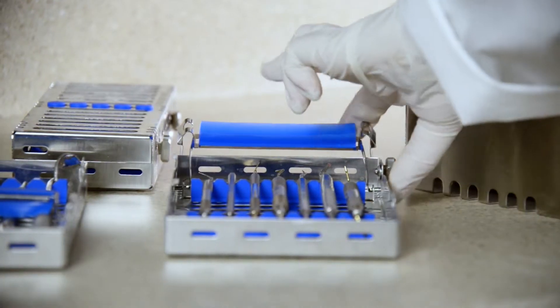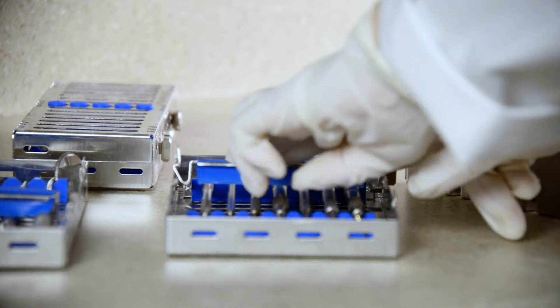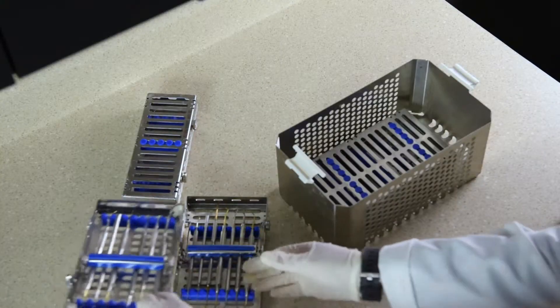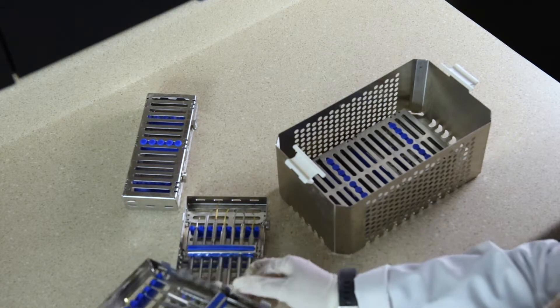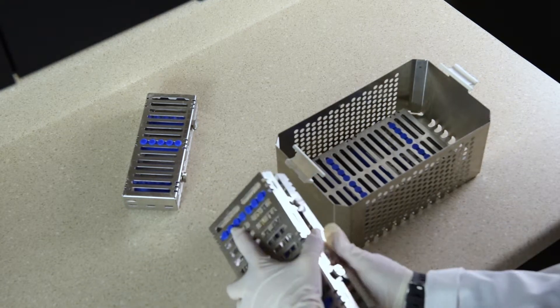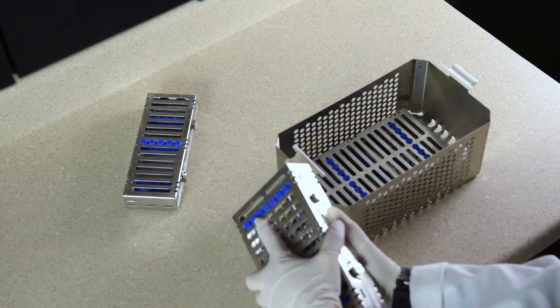Placing instruments in the basket so that they overlap is not recommended, as open surface areas will be easier to clean. Leaving clear space between instruments in a basket should lead to a more effective cleaning cycle.